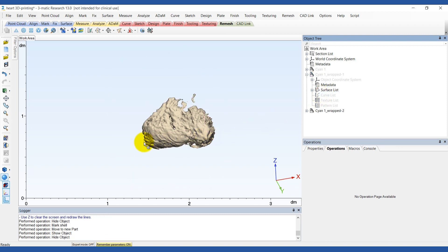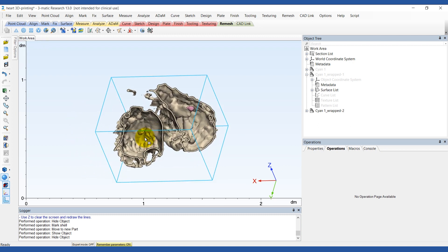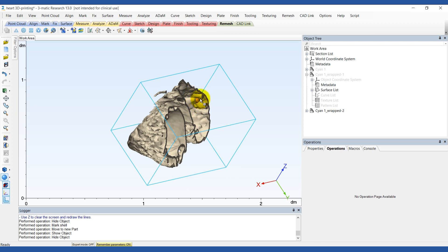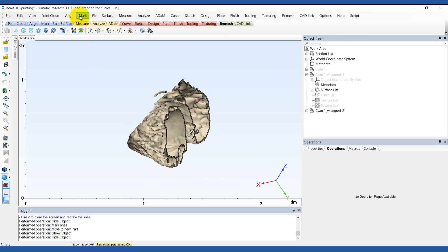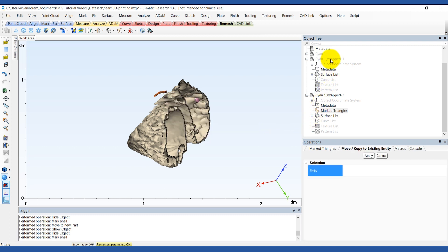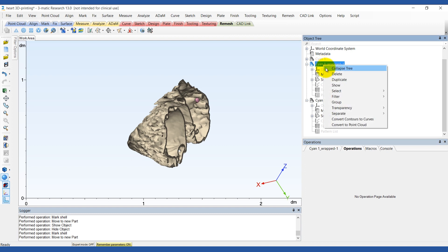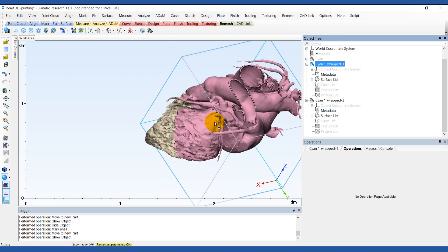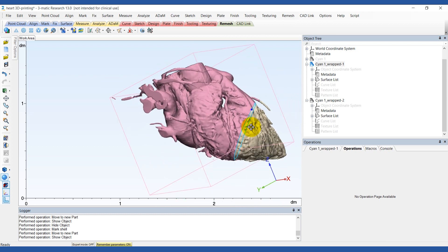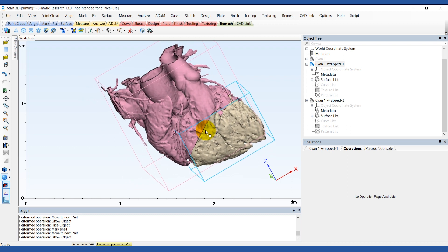We do the opposite for the coronary arteries to move them back to the outer part. Like with the wall thickness, when cutting your part, you'll need to keep in mind what printing technology you'll be using and where the support material will be laid. That's because you want to make sure that you can access all areas of the hollow model. Depending on your situation, you might need to make a few additional cuts so all support material can be cleaned out once it's printed.